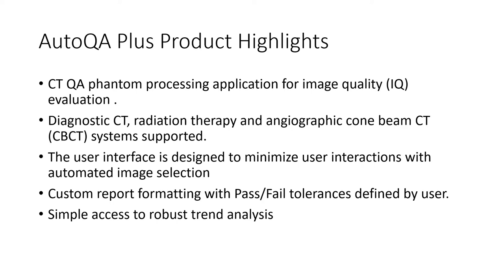This application supports the processing of DICOM images from diagnostic CT, radiation therapy cone beam CT, and angiographic cone beam CT systems. The goal of the new interface design was to create an intuitive workflow that minimizes user input in the data selection and reporting process. Additional emphasis was on the automatic image selection, which is the selection of the center slice of each CatPhan module from a complete scan of the phantom generated from the three sources of images just mentioned.